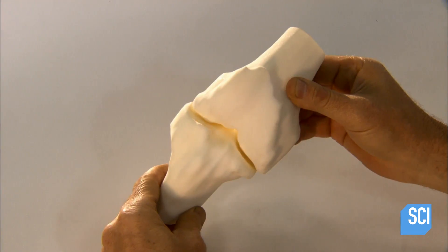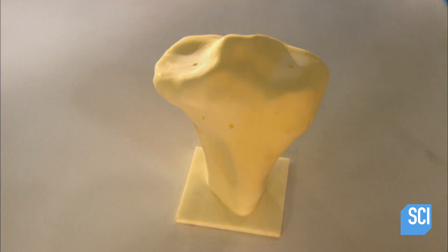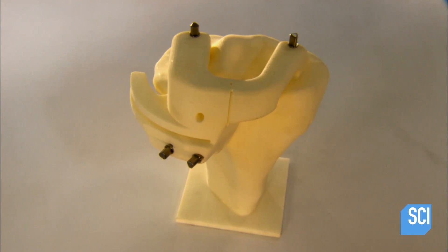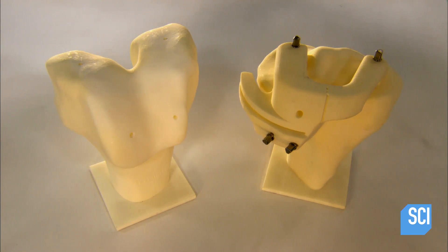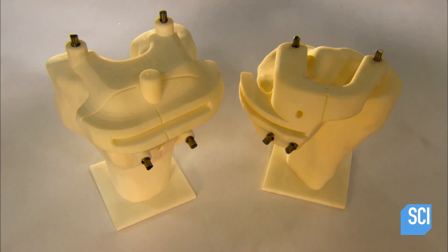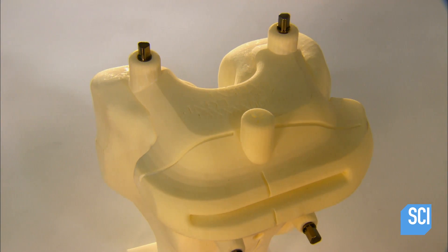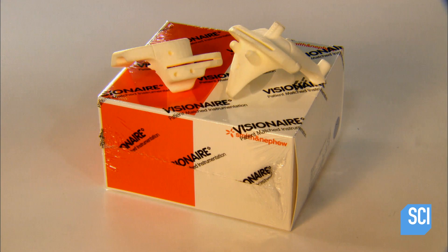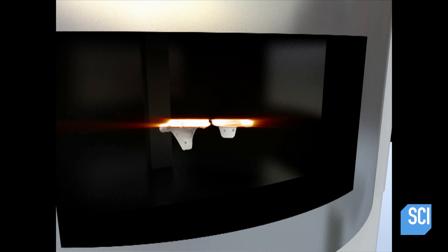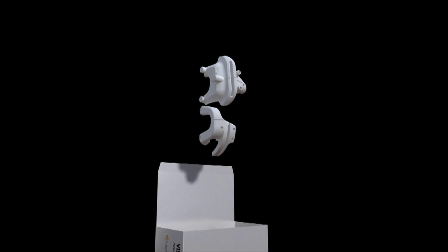This model shows how the femur and tibia form the knee joint and how the surgeon secures the customized template onto each of these bones. Thanks to these devices, the surgeon doesn't have to figure out the bone cuts on the fly in the operating room — they're all pre-calculated by the computer model. This method eliminates several steps required in standard surgery. The operation takes less time and requires half as many instruments to set up and clean up. And because the surgeon no longer has to drill a hole in the bone to check the knee implant's alignment, the patient experiences less pain and bleeding and a smaller chance of developing complications.